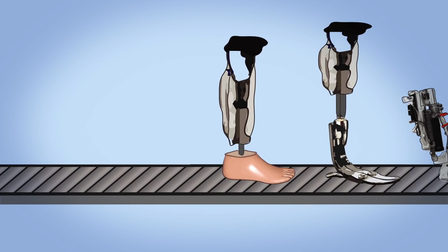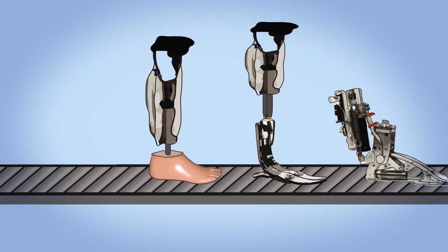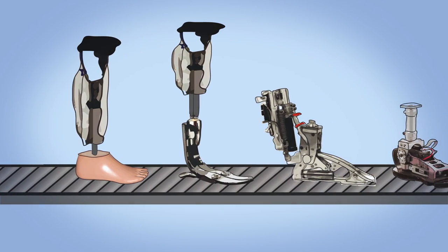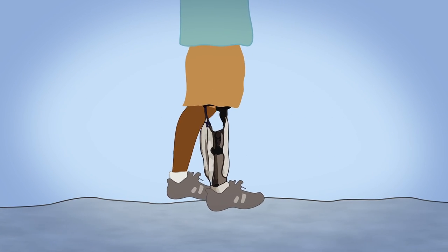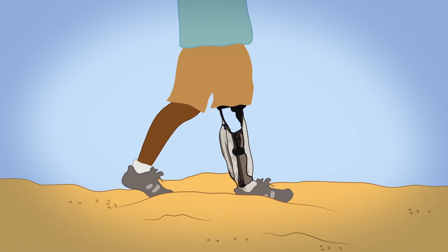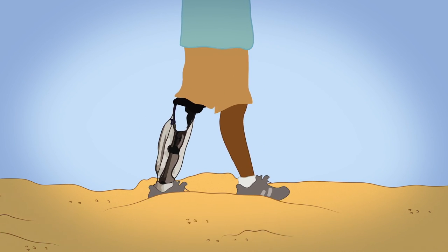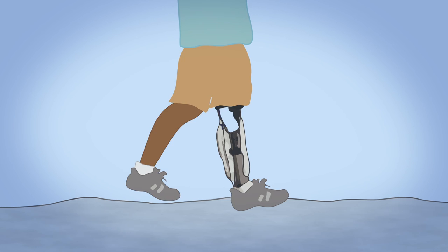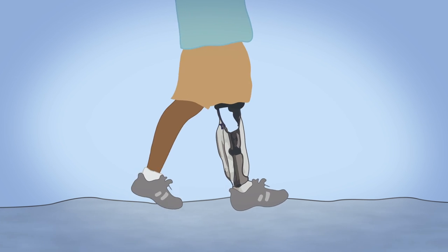There is no one perfect bionic foot. Each system has its pros and cons, and many are still in development. But for amputees, the future is bright. Fewer and fewer will ever have to wear prosthetics that feel like they're sinking in sand. Instead, they'll experience that familiar push-off on every step.